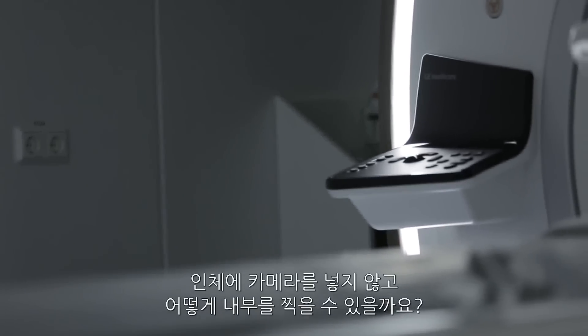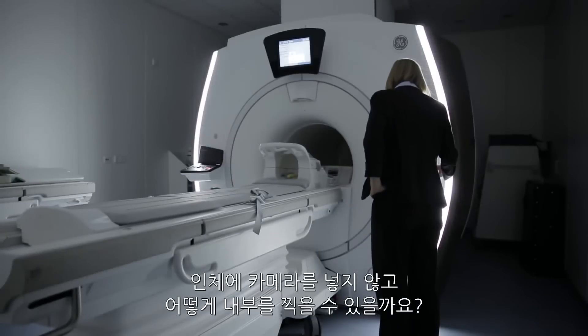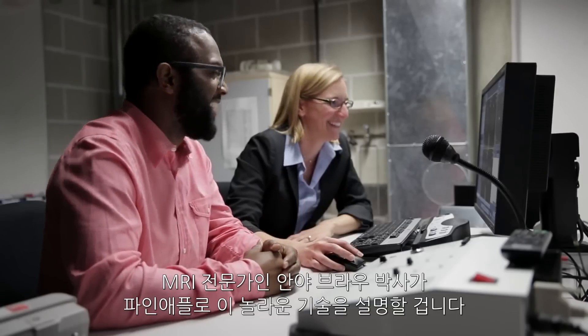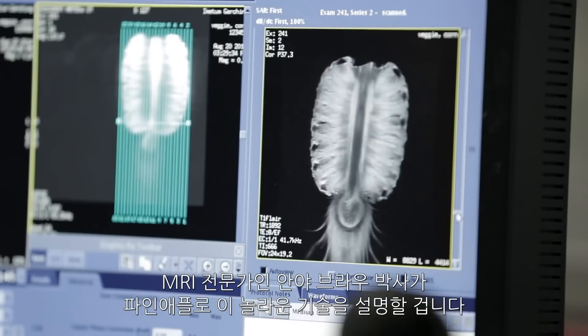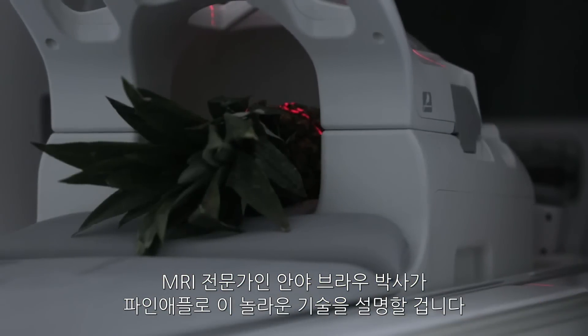How do we get pictures of what's going on inside of us without putting cameras in there? Dr. Anya Brau, MRI scientist and manager, explains using a pineapple.